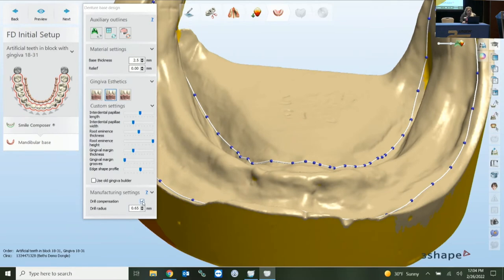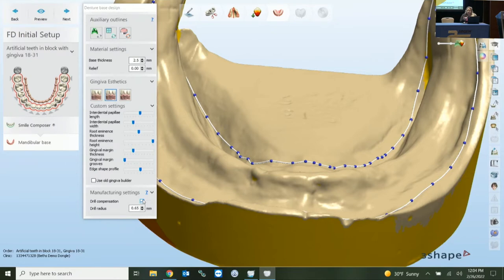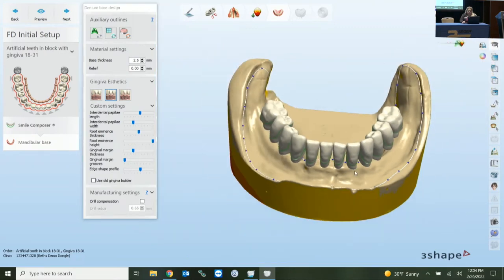Drill compensation at the bottom is for milling. If you're printing, drill compensation can be deactivated — you don't need it; it's specifically for the burr when milling. If you're printing, just uncheck it. If you are milling, your drill radius is definitely related to the burr being used. So we'll put our teeth in, we've chosen natural, now we'll come up to preview.